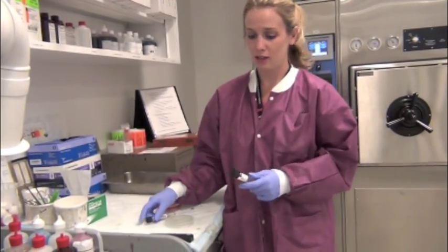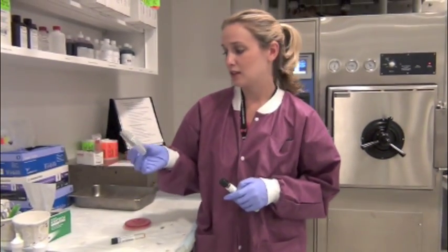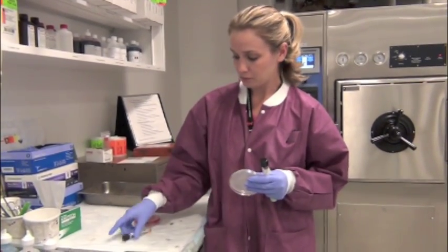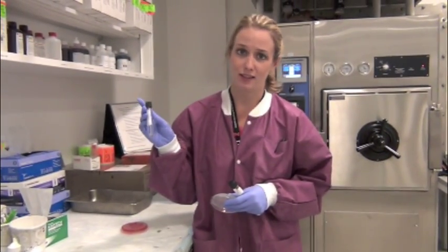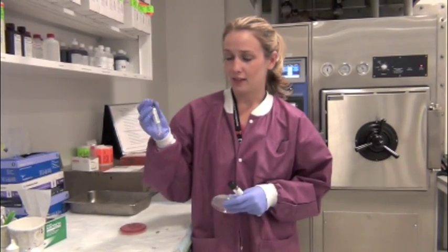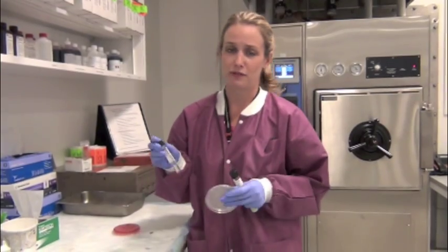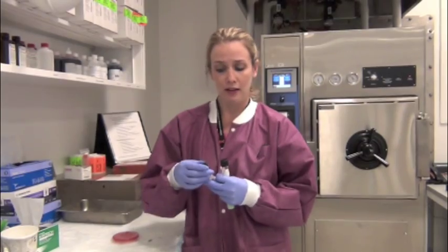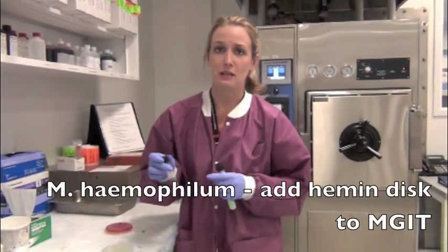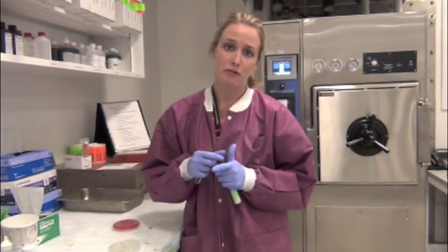There's 3 types of media that we use: an egg-based media, which is Lowenstein Jensen, an agar-based media, which is Middlebrook 7H11, and a liquid media in our MGIT tubes, which stands for Mycobacteria Growth Indicator Tube. This media is Middlebrook 7H9. It's important to use multiple different kinds of culture media so that you can grow all different kinds of mycobacteria. If one is suspecting Mycobacterium haemophilum, it's also important to add a hemin disc to your MGIT tube so that it can get the appropriate heme cofactors for growth.